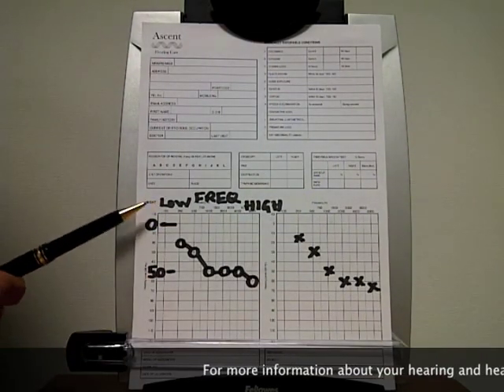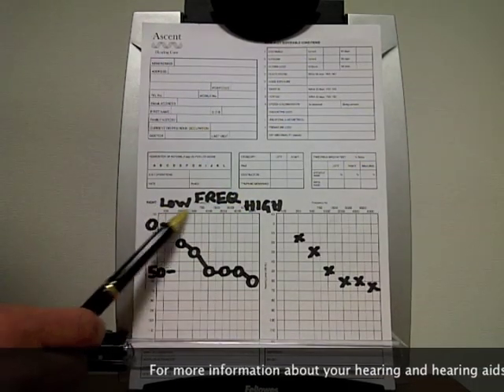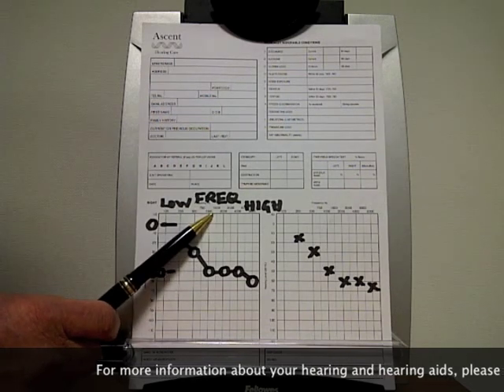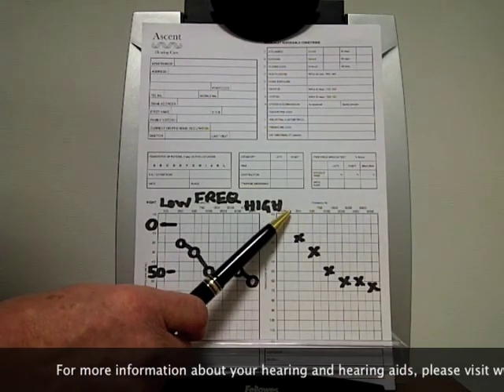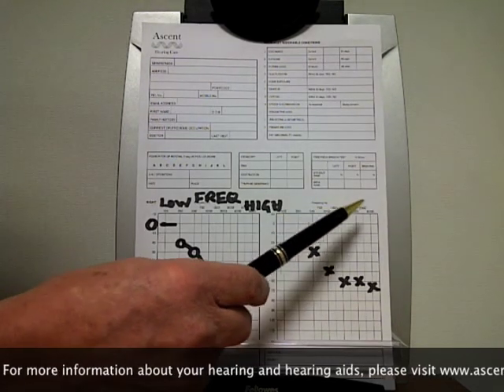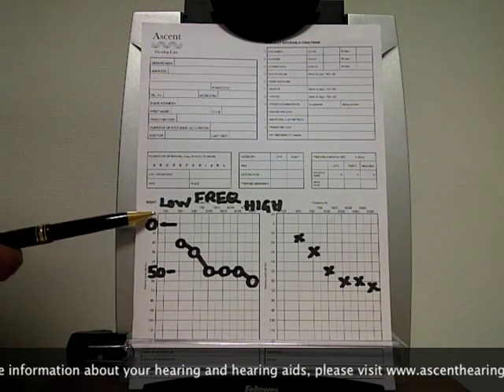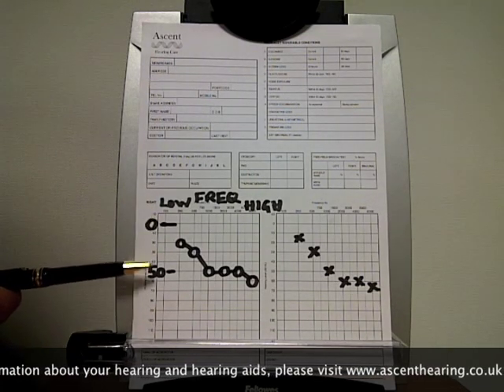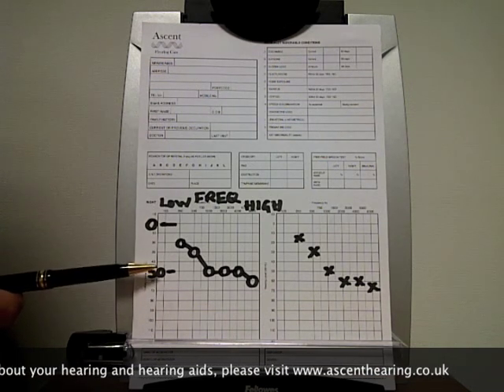The audiogram has two axes. The horizontal axis has frequency — low pitch, middle pitch, high pitch — and the same on the left ear over here: low pitch, middle pitch, high pitch. The vertical axis is a measure of the intensity of the signal required for the client to just hear the signal — their thresholds of hearing.